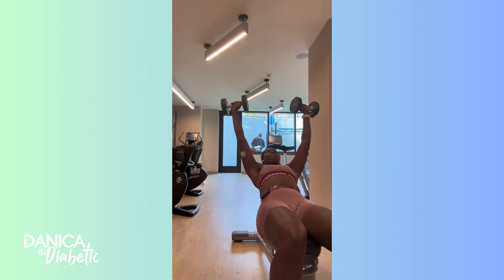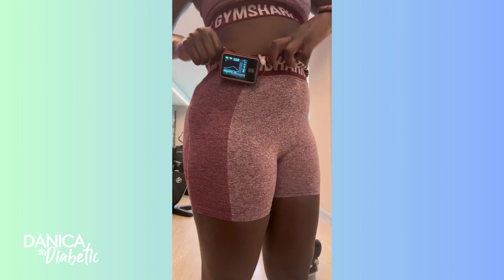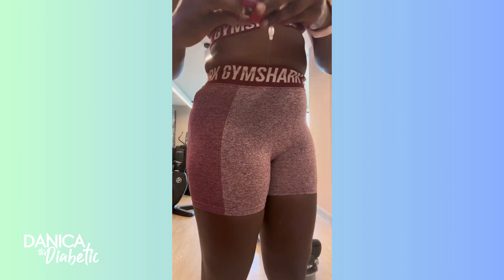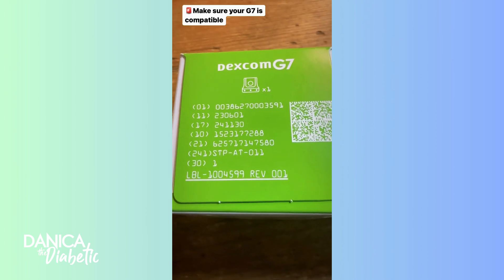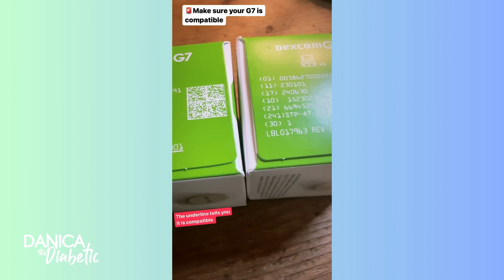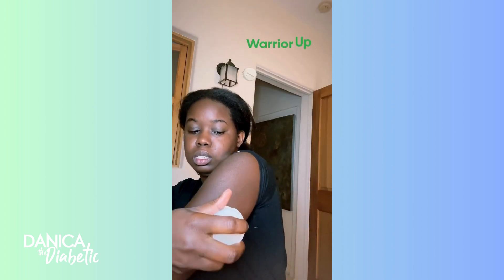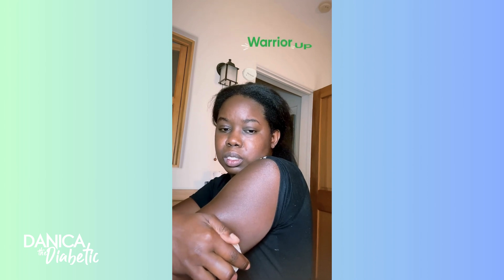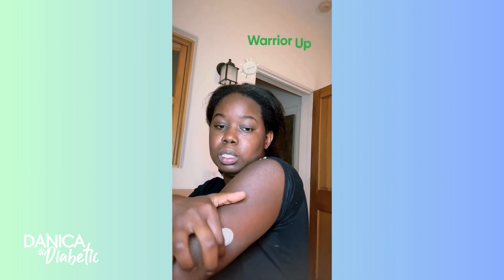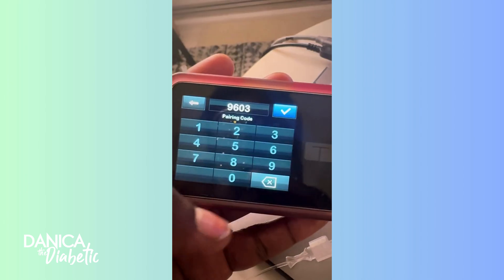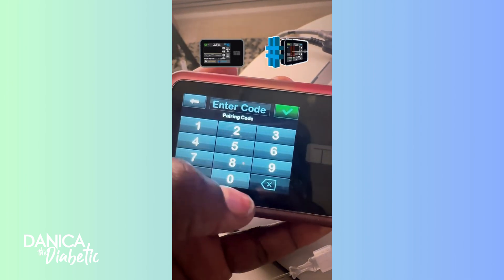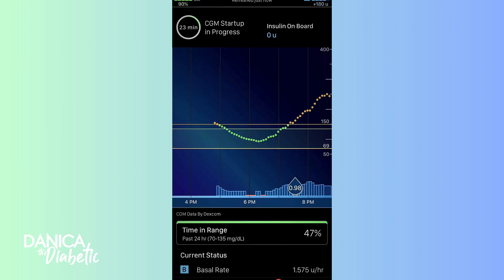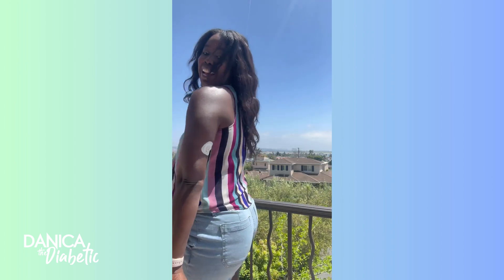Wishing you guys the best of luck with your pump and G7 integration. And let me know what questions you have. The software update was pretty self-explanatory. It was a little bit longer than I expected, but I'm so glad that I paid attention because there are significant changes just because it's a new Dexcom that you are integrating. So make sure that you pay attention and you reach out to Tandem support if you have questions or any issues getting it integrated. You want to make sure that you know how to use your pump with the new tech and that it's working pretty seamlessly for you. So again, let me know what questions you have. Drop in the comments, direct message me, anything you want. Happy to help and happy pumping.